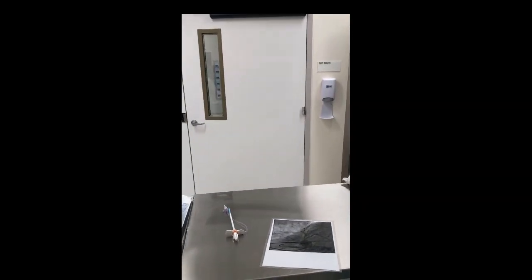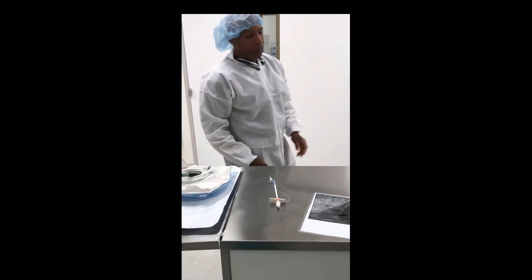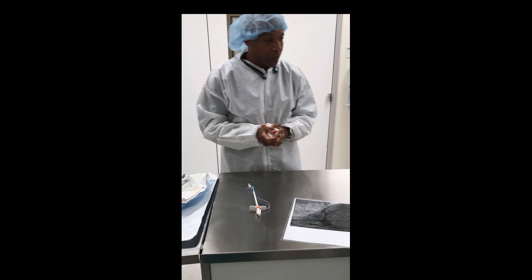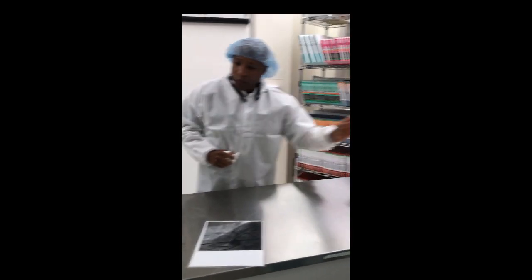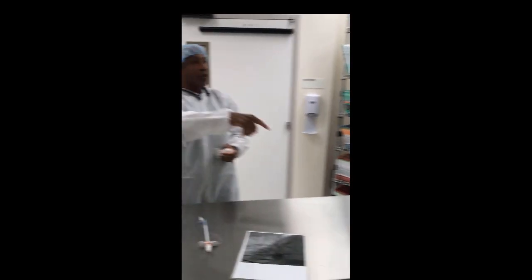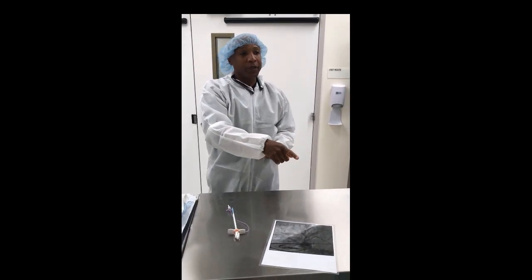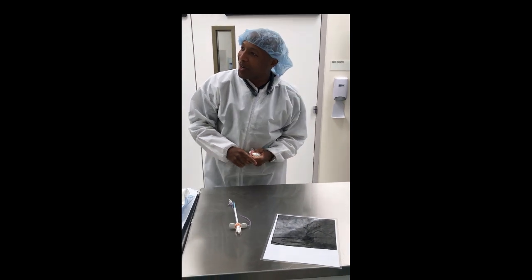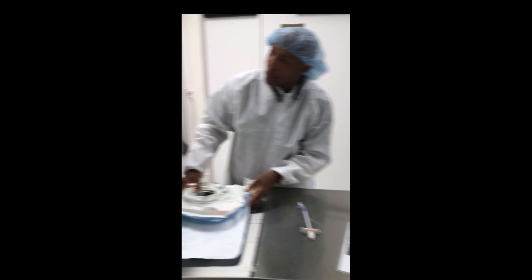Let's talk about the components. Kevin, you're going to be Dr. Krauss and say 'Let's get the Impella set up — we have two minutes.' Here's the patient's heart, we're on the field. You're scrubbing, Dr. Krauss; Tracy is circulating — all of these components are off the field. See the CP box back there? Let's open it.